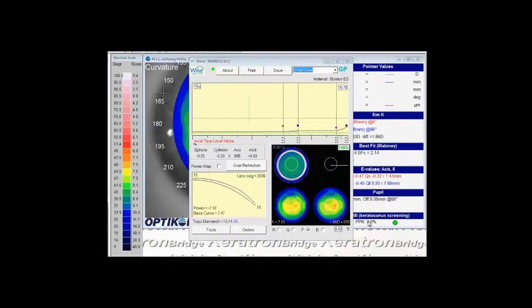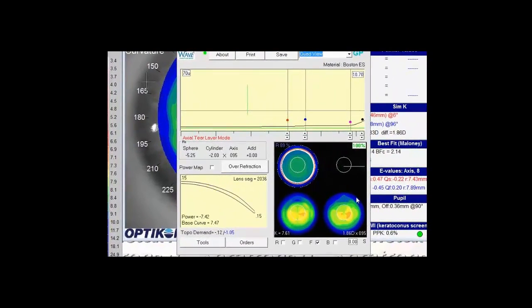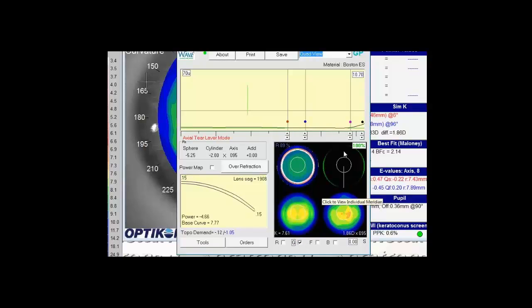So now that we've covered the basics of adjusting curvature in the back surface of the contact lens, we'll look at some of the more common adjustments you might need to make. Let's say, for example, we put this lens on the patient's eye and had some inferior edge lift. We could simply come down to the inferior portion. Because this design is freeform, we'll be able to control specifically that one quadrant. Remember, if this were a G-SIM design, any change we do inferior would also affect the superior portion of the lens. So I'm going to leave it in freeform for this example. Let's simply change this to 50% because 50% will blend our change more rather than making it more of a sharp change.